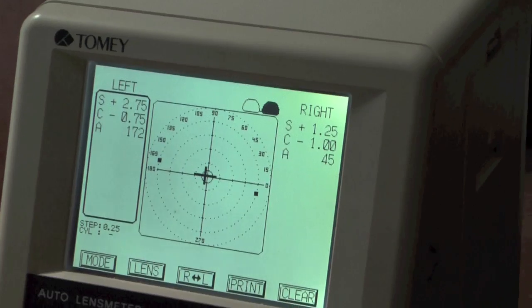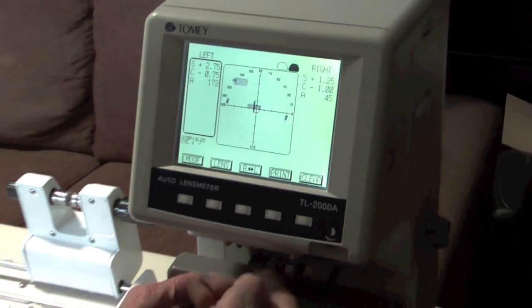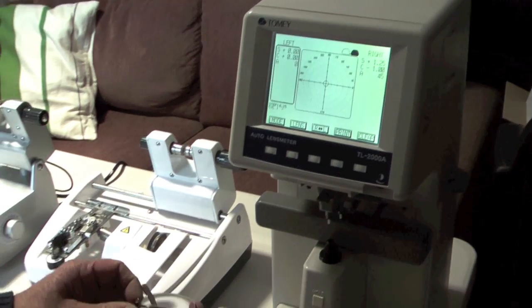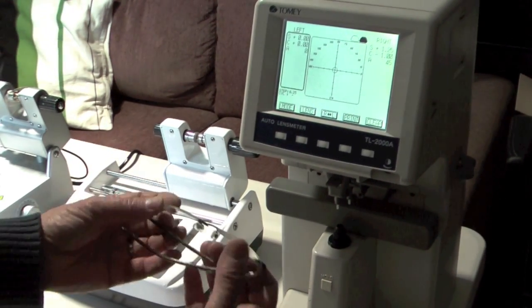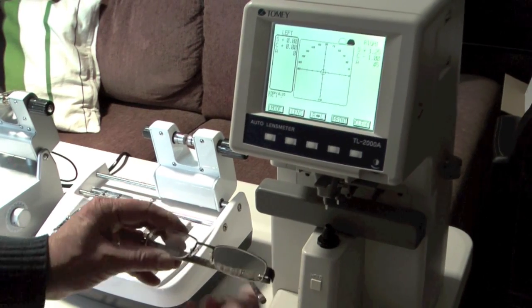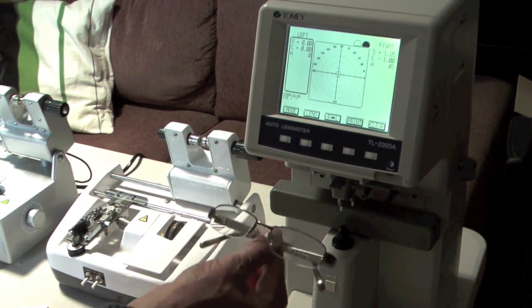So there we've done it. We've made up a pair of glasses. And it takes, the process takes about, I suppose, 10 or 15 minutes. And they're very accurate.